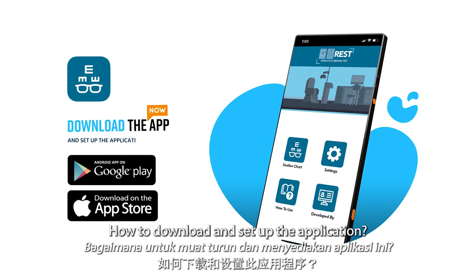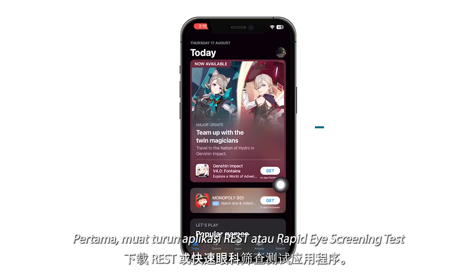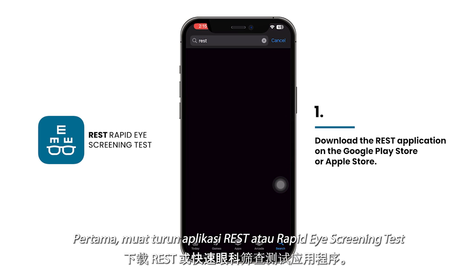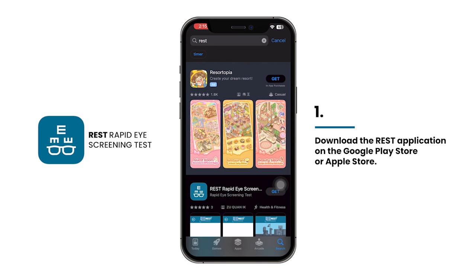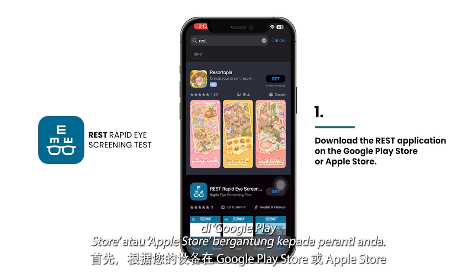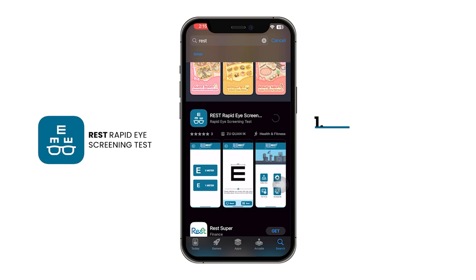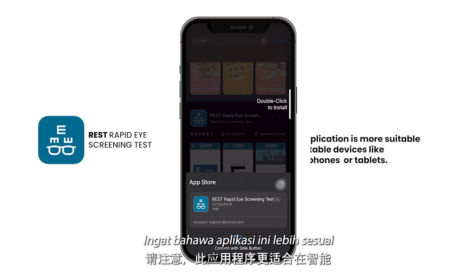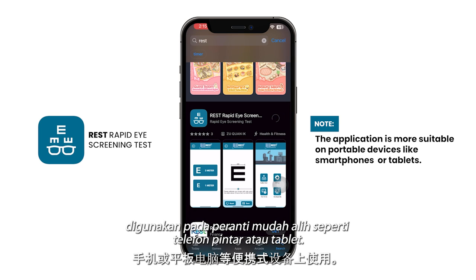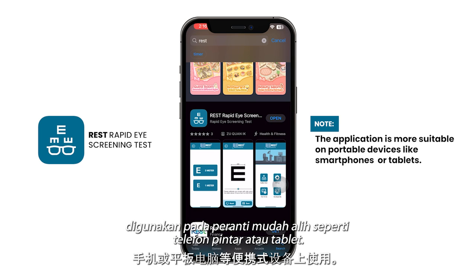How to download and set up the application? Firstly, download the REST or Rapid Eye Screening Test application on the Google Play Store or Apple Store depending on your device. Take note that the application is more suitable to be used on portable devices like smartphones or tablets.